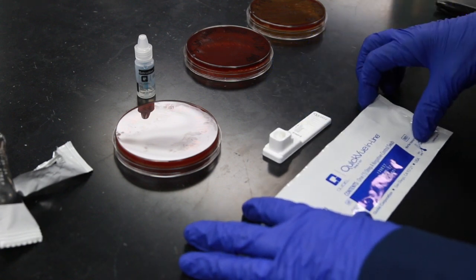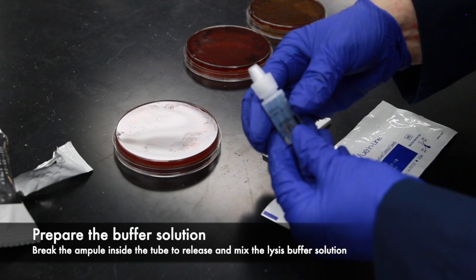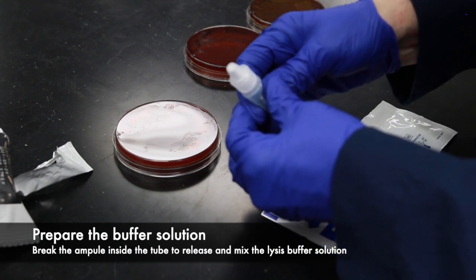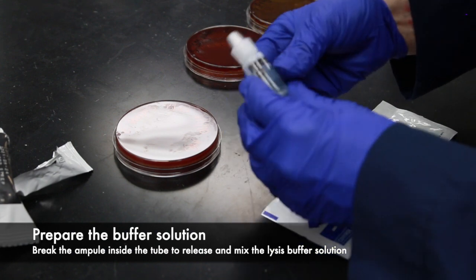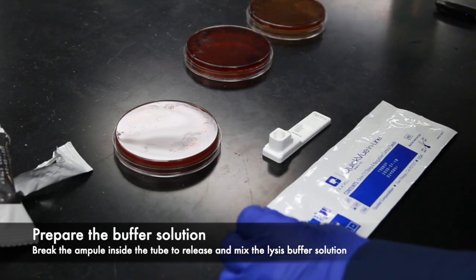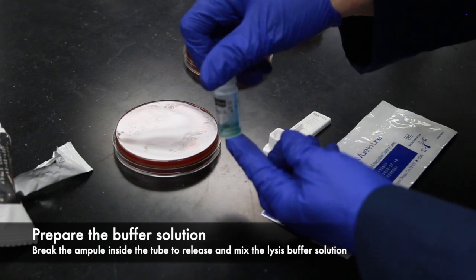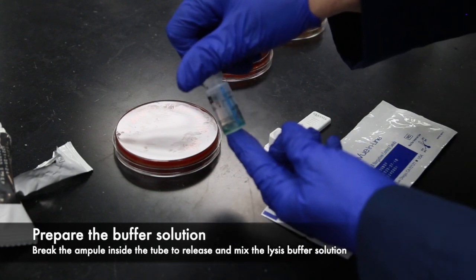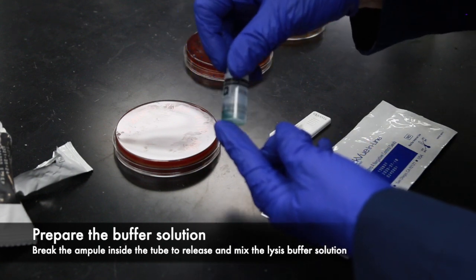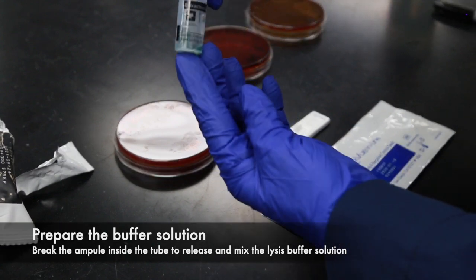After opening the flow device, you're going to want to prepare the buffer solution. The buffer solution is inside a glass ampule, and you need to squeeze the tube tightly to break the glass ampule and release the buffer. You should see a nice green solution in the bottom of the buffer tube.